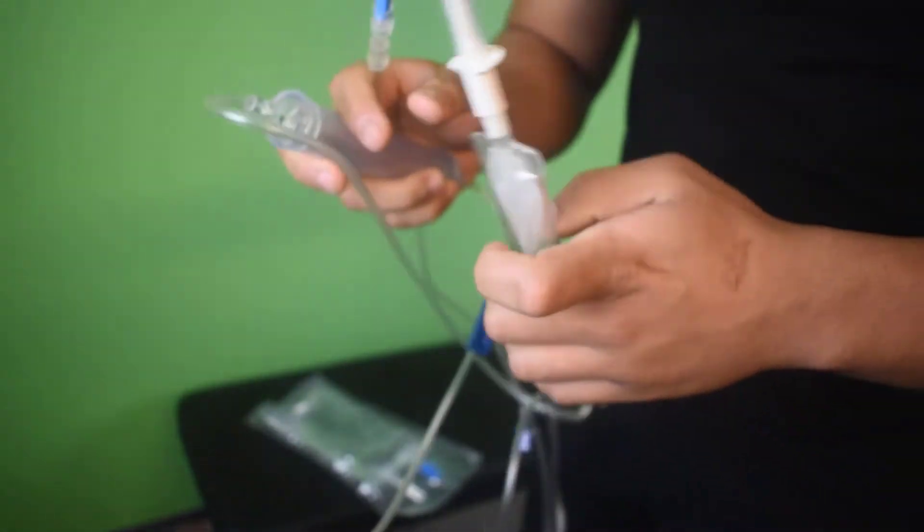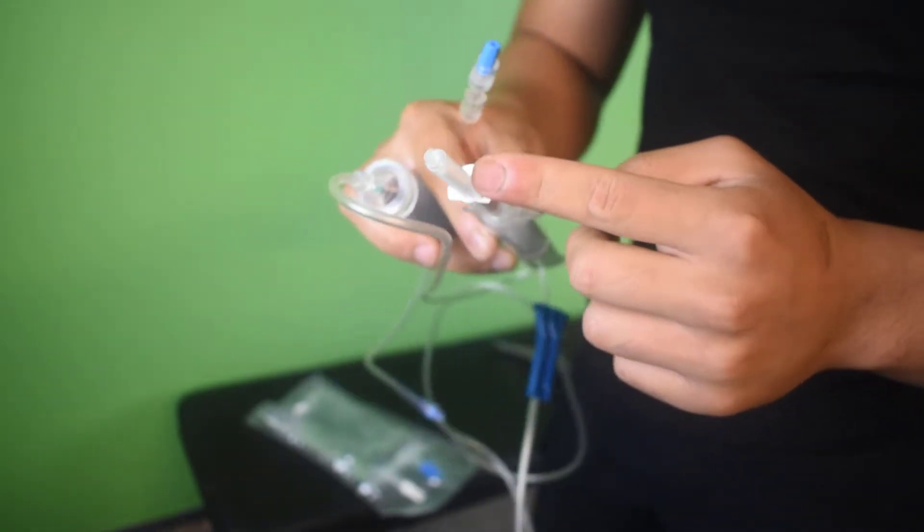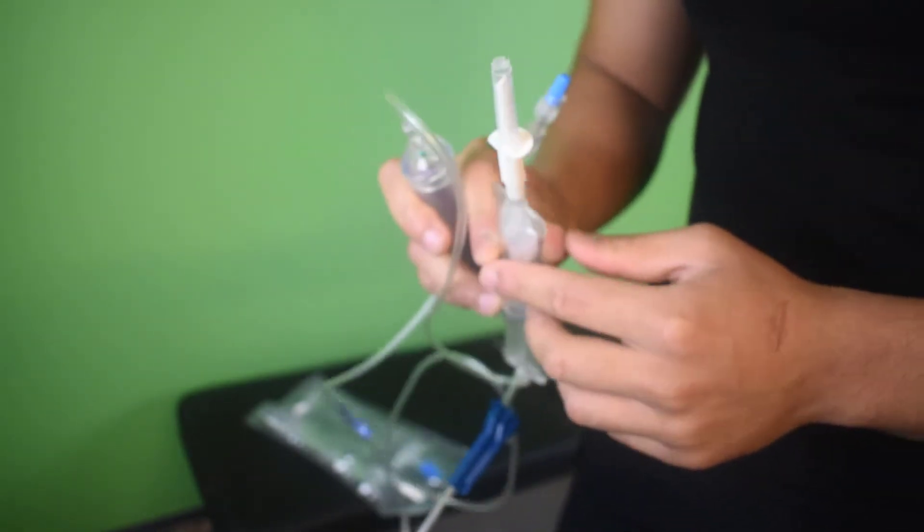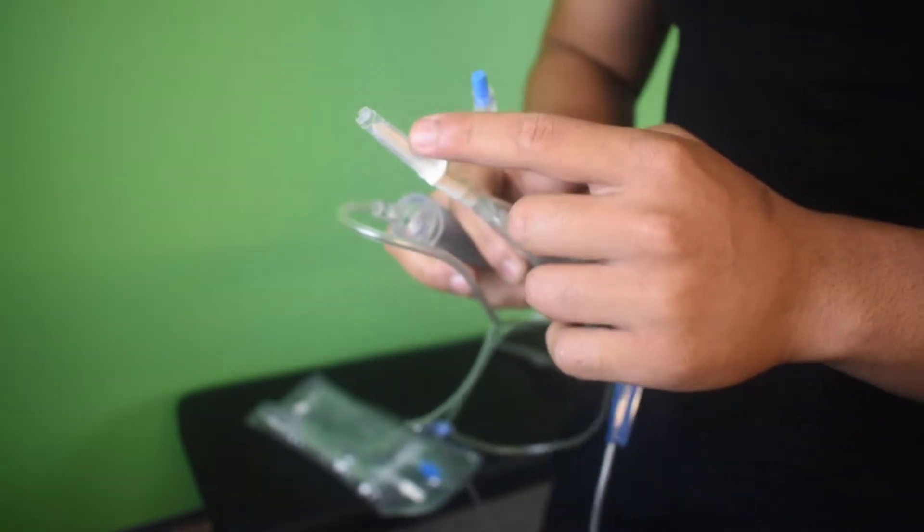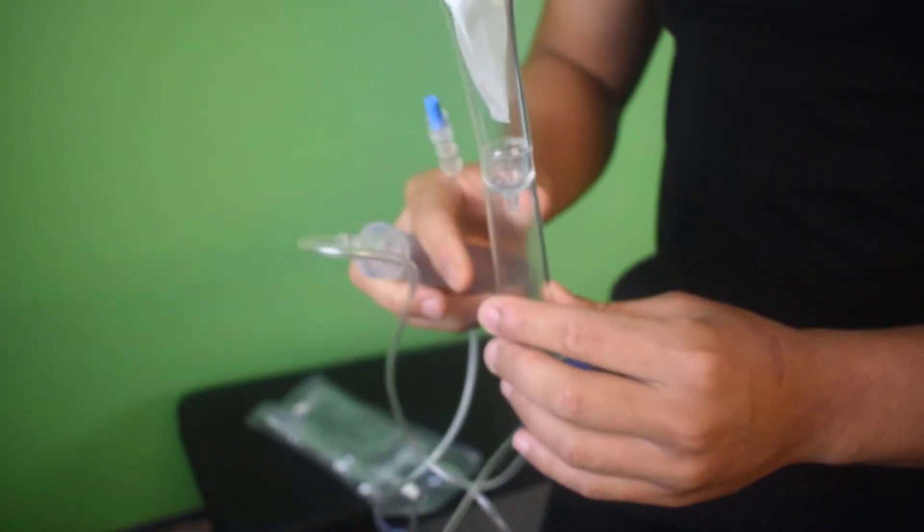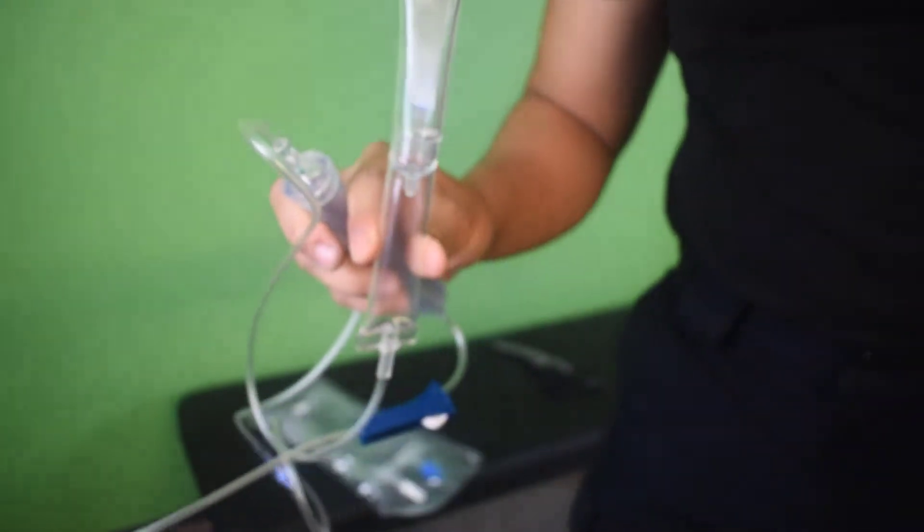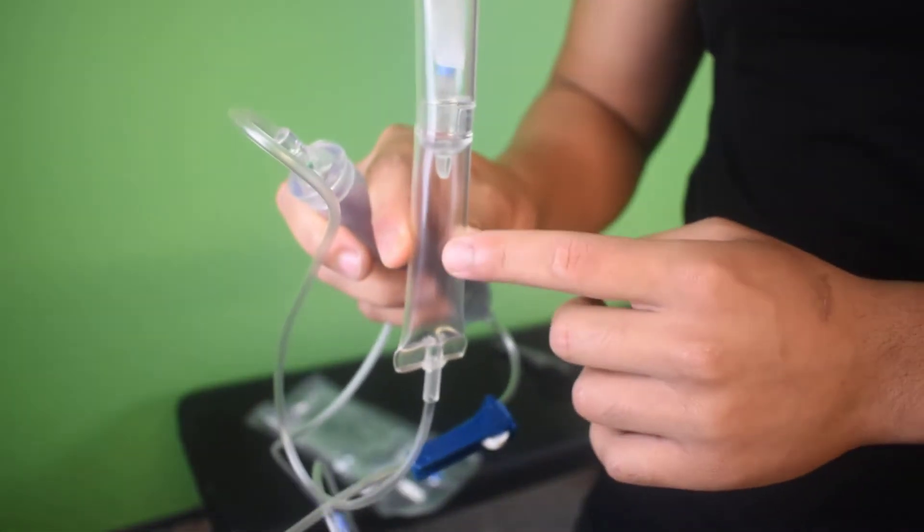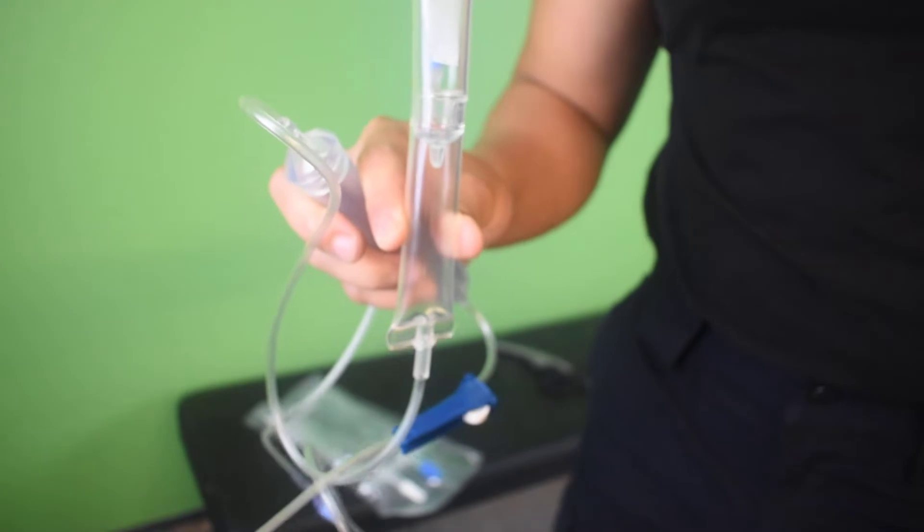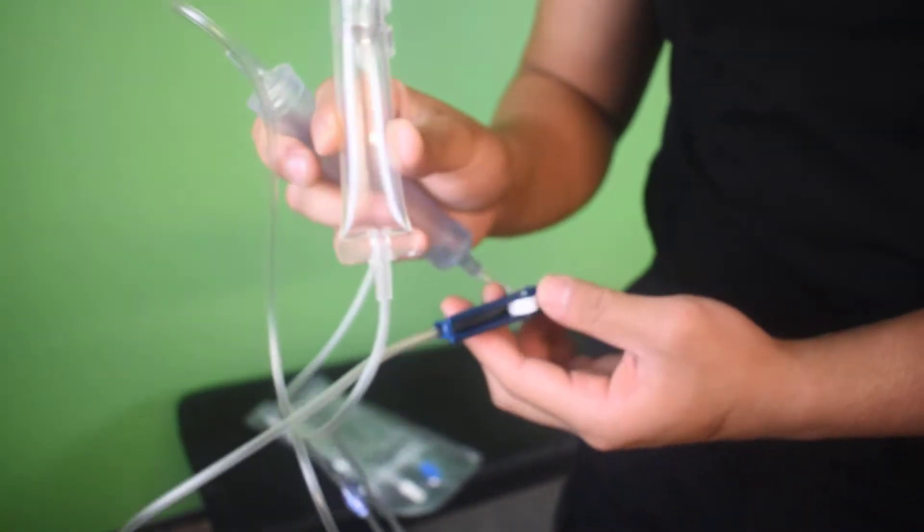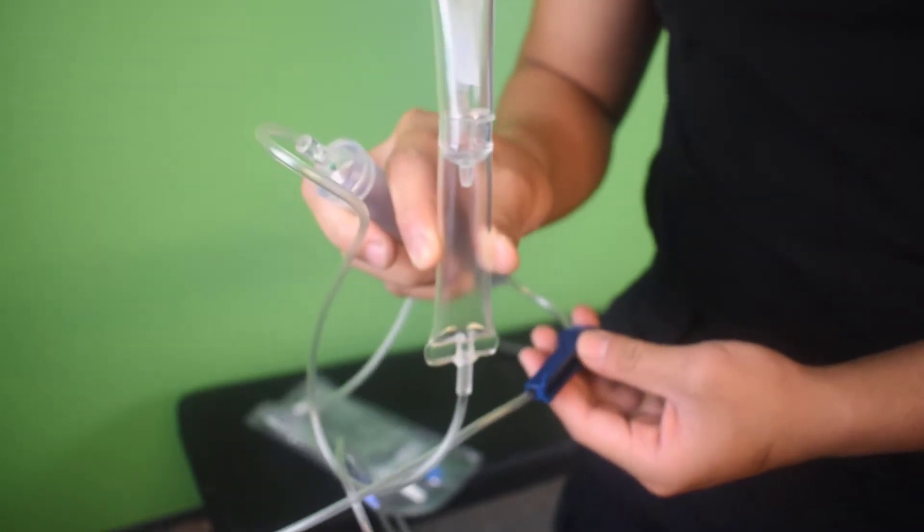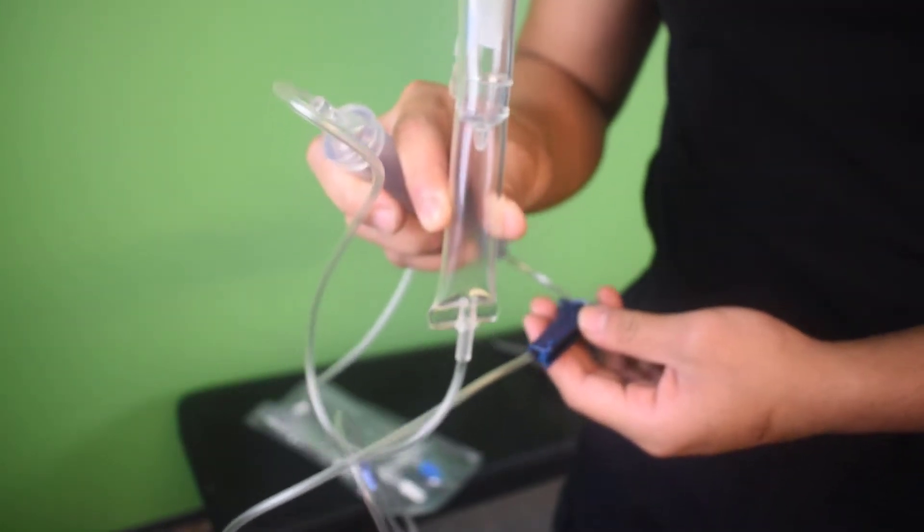Things you don't want to touch is you don't want to touch the Luer lock at the end where the medication will go into the patient. So key features: this pointing part here, this enters the medication. So this will poke in, and the fluids will then start flowing into what's called the drip chamber. The drip chamber is really important because this allows you to actually measure how many drips are going into the patient. And you can actually control it using the lock here to either slow down the fluids or to increase it.